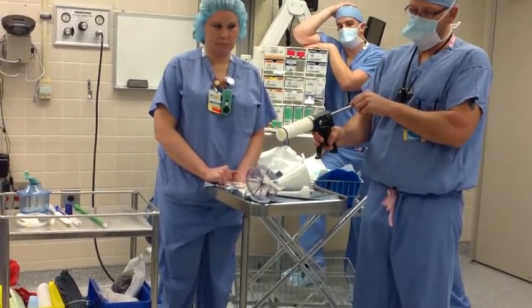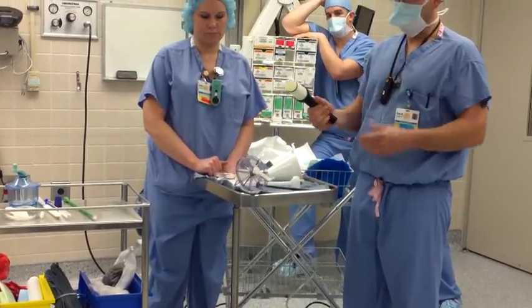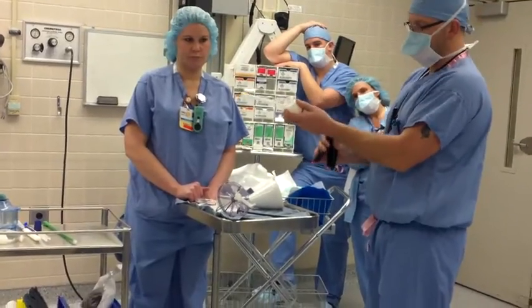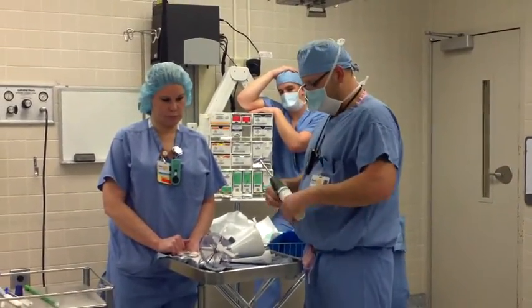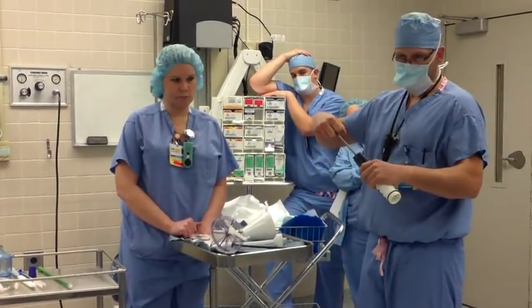Usually I put it on pressurized. You can push this up to wherever it engages the cement, and you feel it start pushing. It's just like a caulking gun. This will be on here with cement in this tube — that's the step you're getting to. And you cannot take this back off until this plunger is pulled all the way back out.